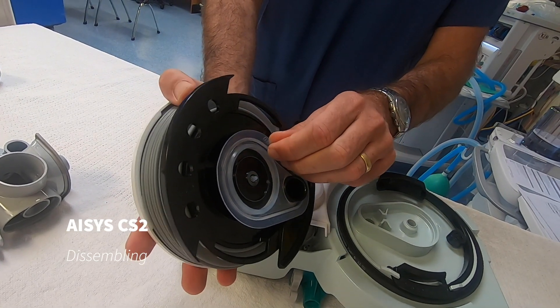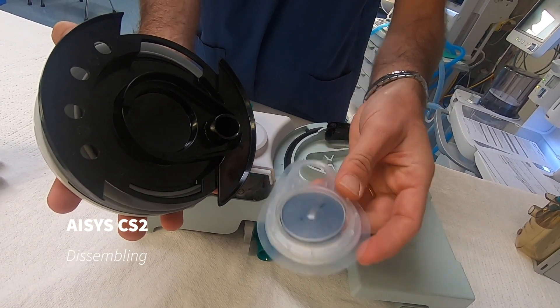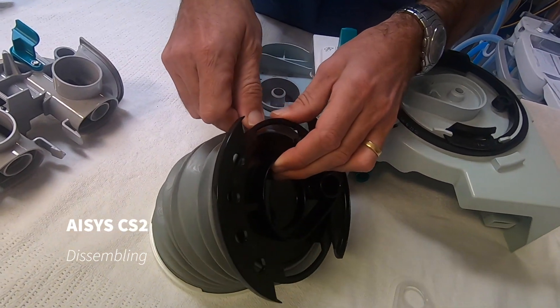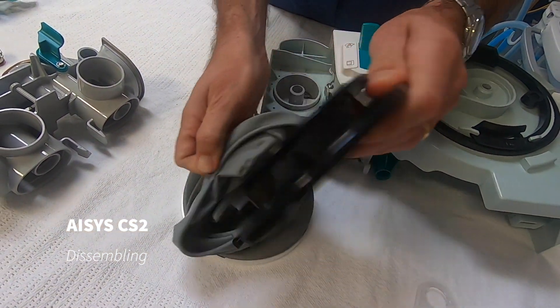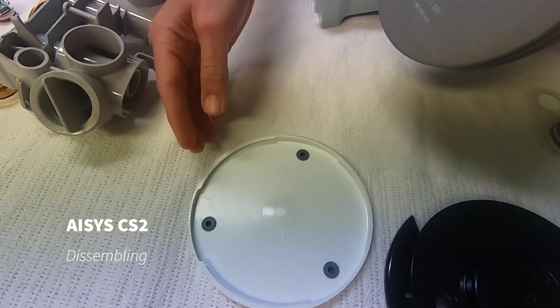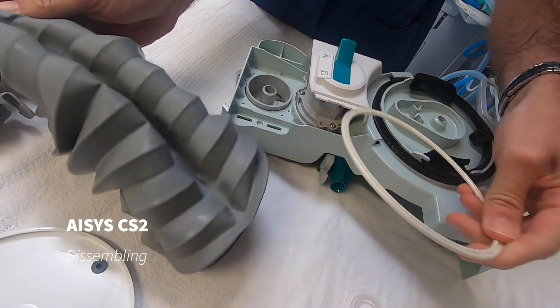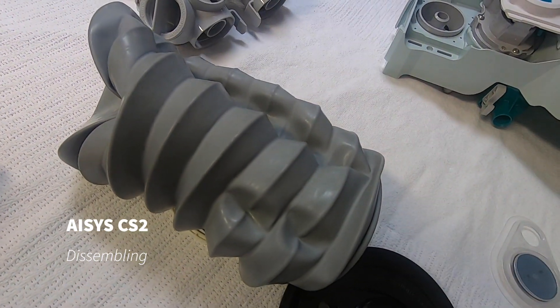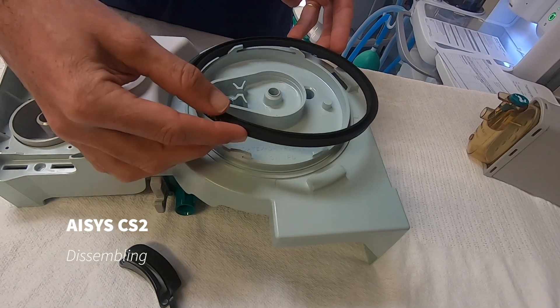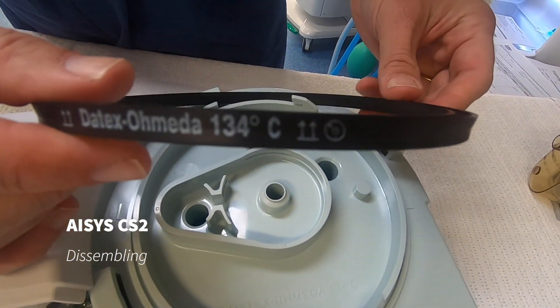This valve is the pop-up valve, or the high-pressure valve, which releases at 40 centimetres of water. There's no need to remove the black plastic from the silicon. The bellows assembly is disassembled into four pieces: we stretch that off, remove the white case off the top, and inside there is a white ring that we remove as well. There are two more pieces — noting that the arrows are pointing up for reassembly.